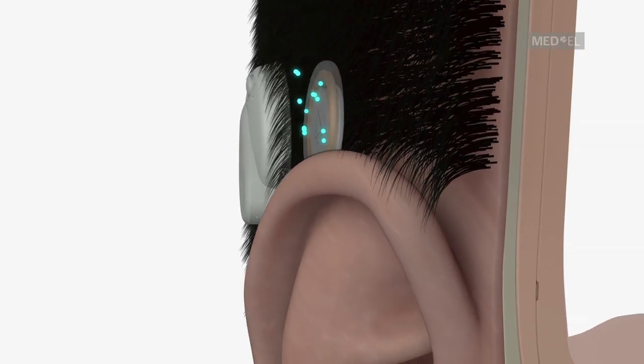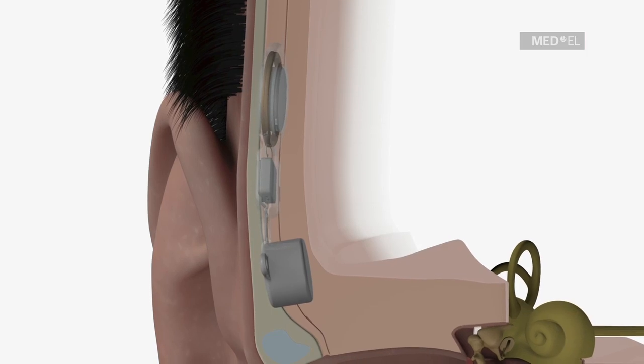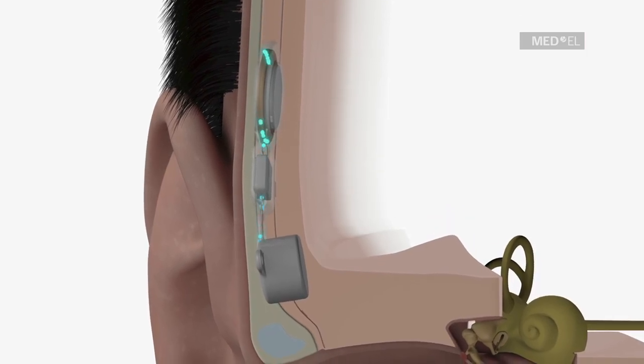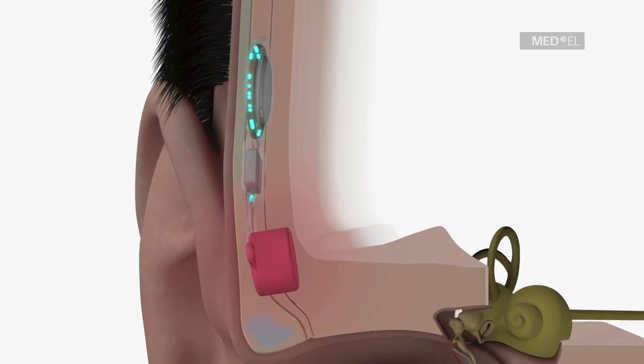The implant is fixed in the temporal bone. The signal converter of the implant converts the signals into mechanical vibrations which are transmitted to the skull.